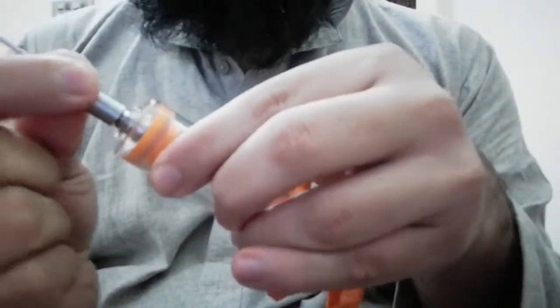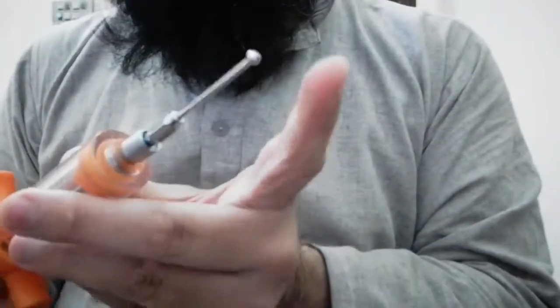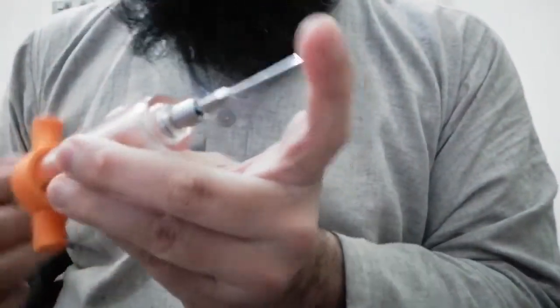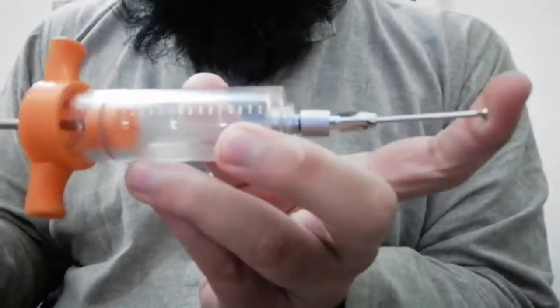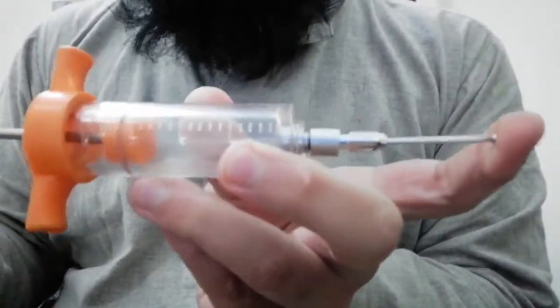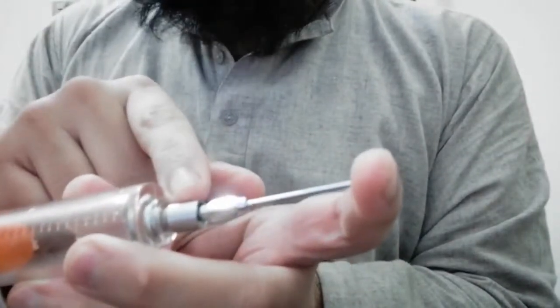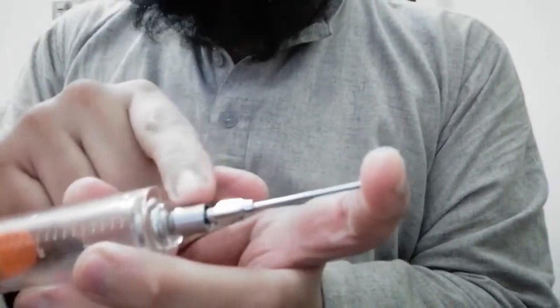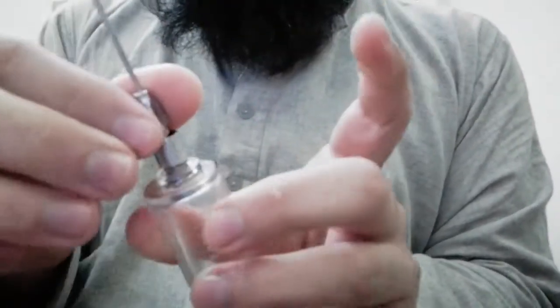If you will rotate and try to fix the needle with ease, it will still work. But the issue will be that even if you block its spot, it will still throw air. The pusher is still moving and you can hear air noise from this point. You will be able to feed with this but air will also enter in the crop with the feed.